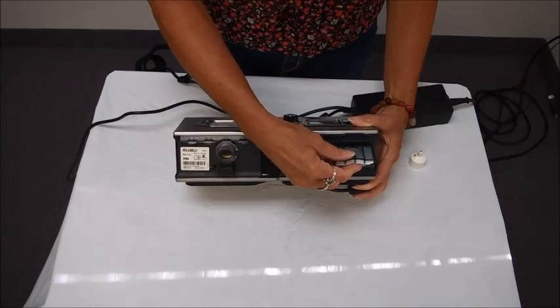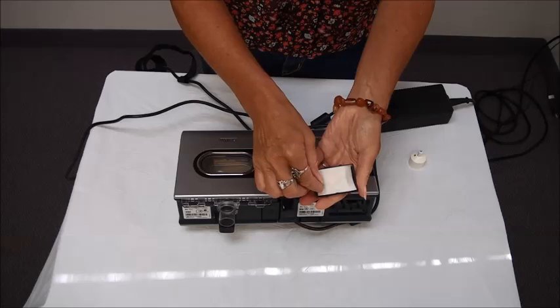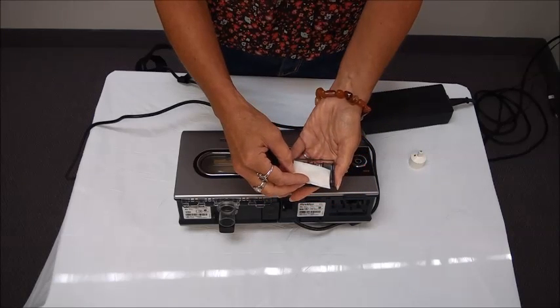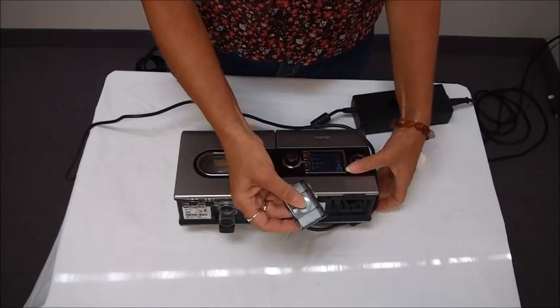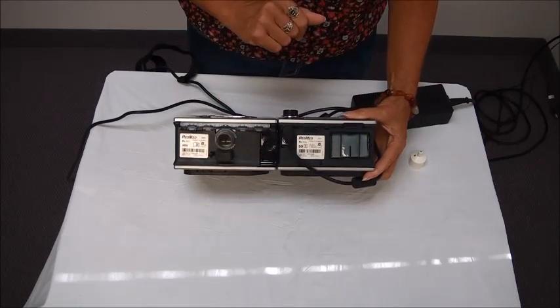There's a cover that you can see that just comes right off and the filter fits right inside the cover, and that would need to be changed monthly or more often when it gets dirty. It's a disposable filter so when it looks dirty you would just throw it away and put in a clean one. Then to install the cover back on you just snap it right into place.